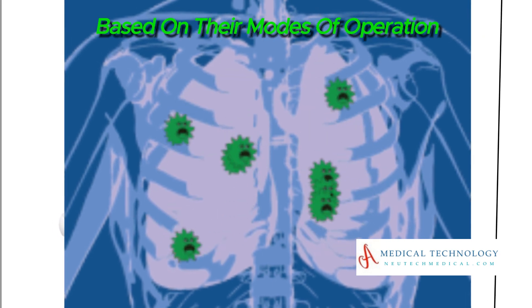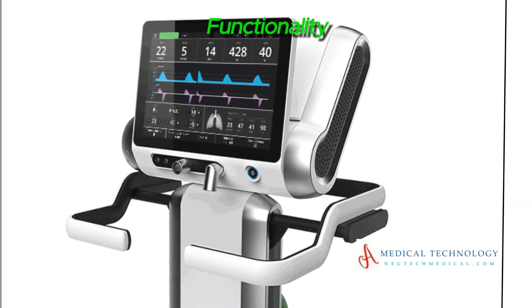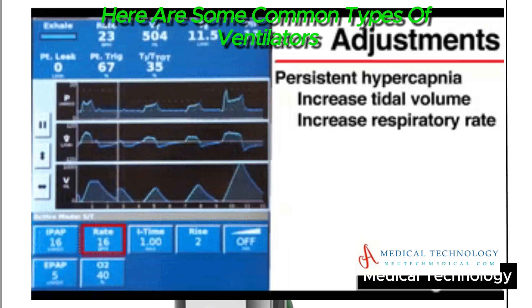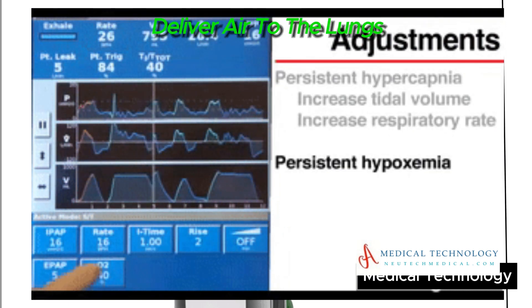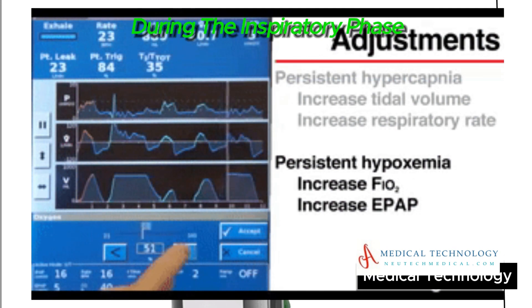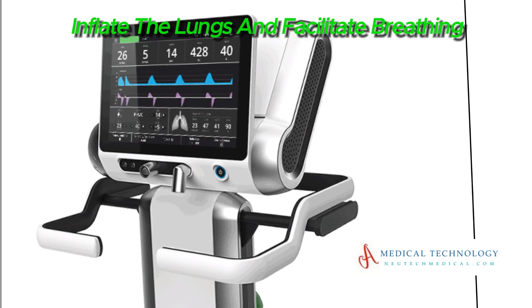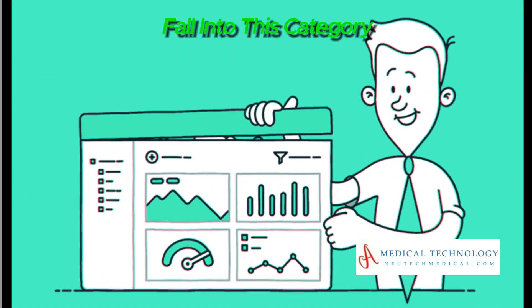Ventilators can be categorized based on their modes of operation, functionality, and intended use. Here are some common types. Positive pressure ventilators deliver air to the lungs by creating positive pressure during the inspiratory phase. Positive pressure helps inflate the lungs and facilitate breathing, and most modern ventilators fall into this category.